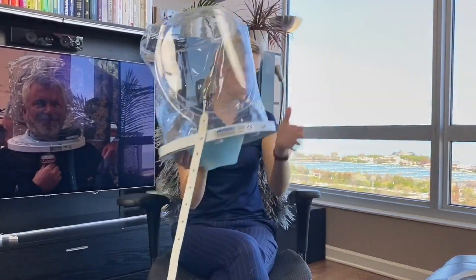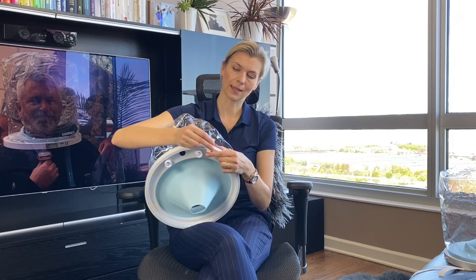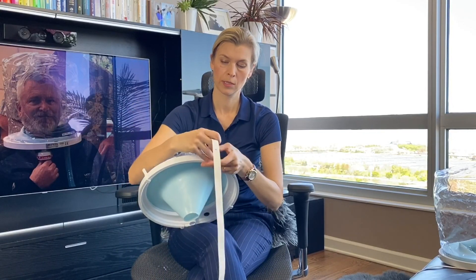So it's a very nice design. What else is included in the package? I received these clips. These clips are for the older design of the helmet that is used for hyperbaric oxygen treatment — that's the one that would separate under high pressure. So if you still have those helmets, you can also use them for non-invasive ventilation; you just need to add the clips. These clips are definitely bulletproof — they don't break. I put them on multiple times. What is nice is that these clips hold the helmet together — that's the old design. You can also connect your underarm straps on the clip and use this helmet for non-invasive ventilation.